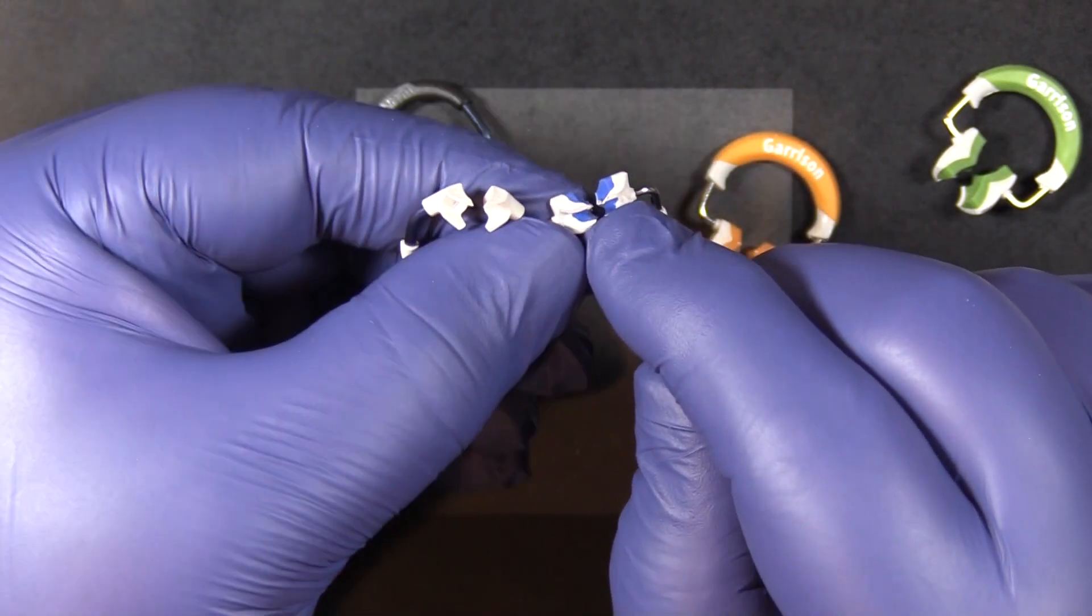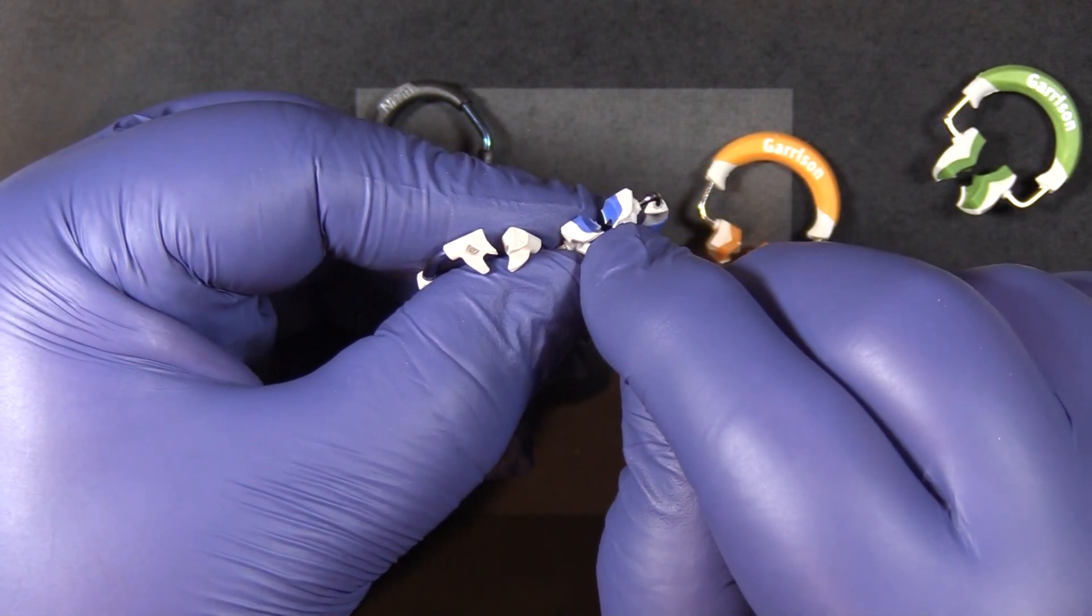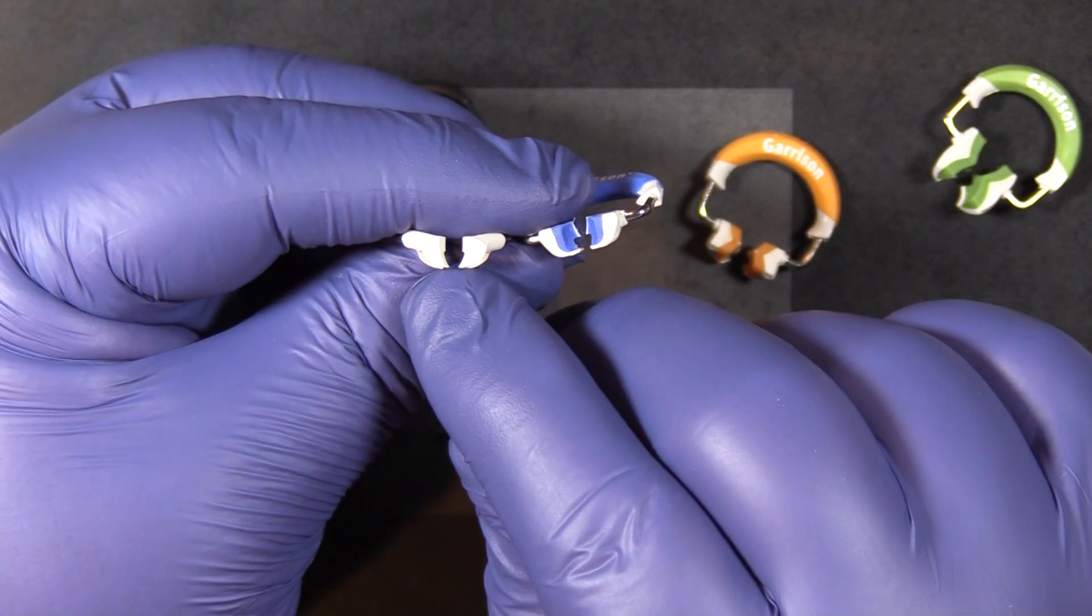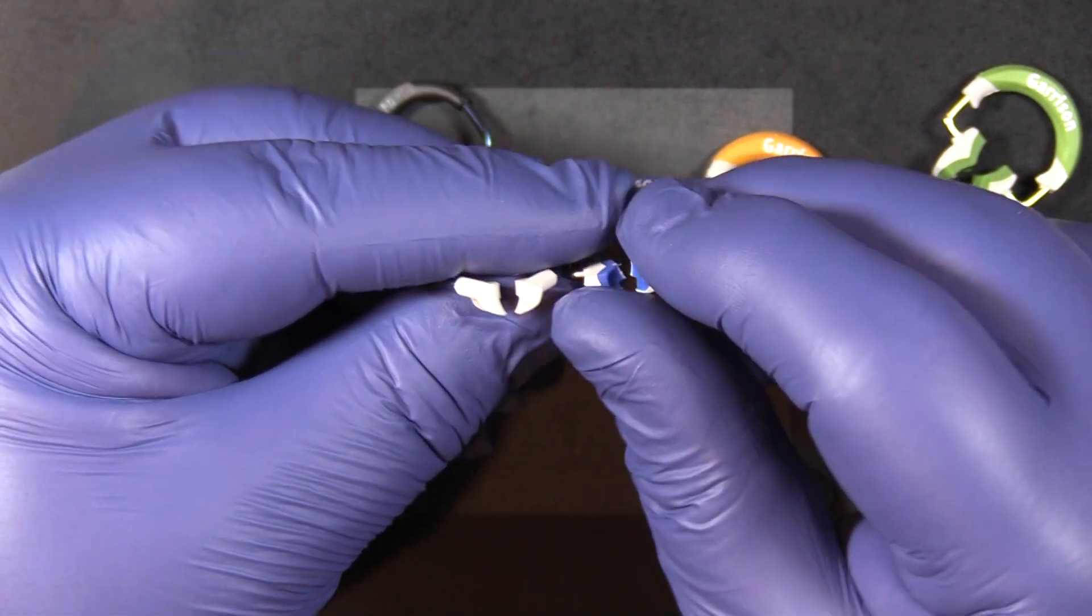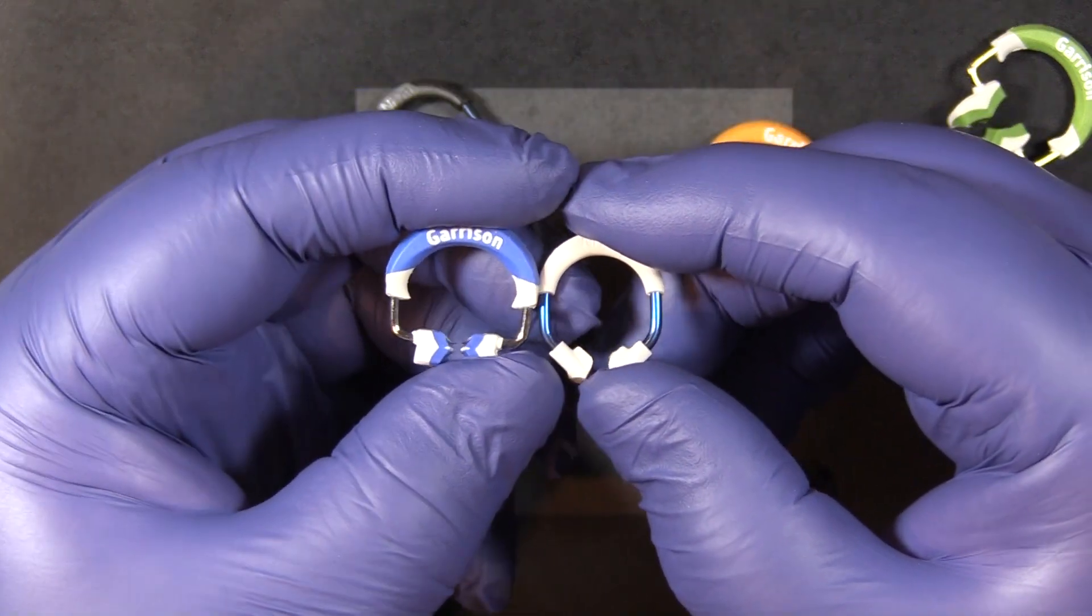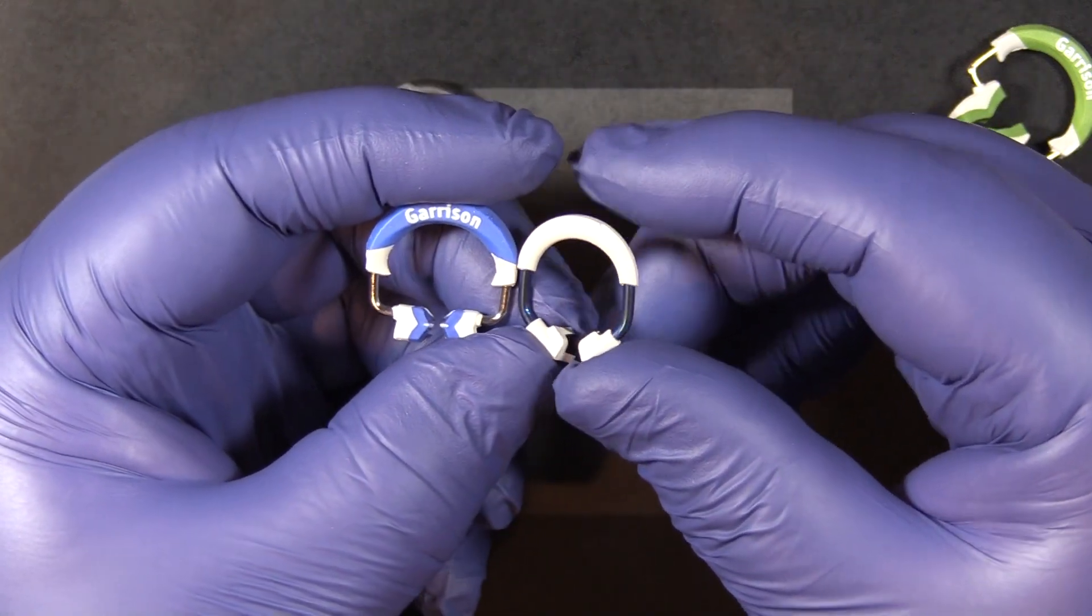Both of these, you can see how we've brought that plastic all the way around to the bottom there into little grippers to prevent the rings from popping off the teeth. They both have that horseshoe shape that actually allows the spring to maintain its tension over a longer period of time.